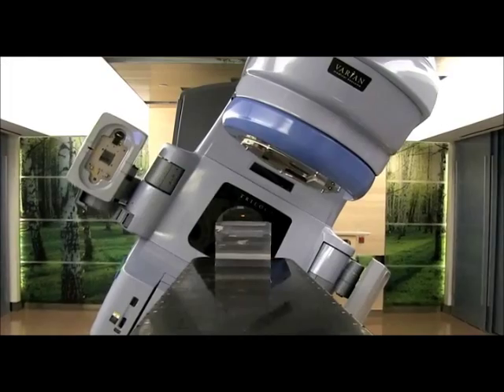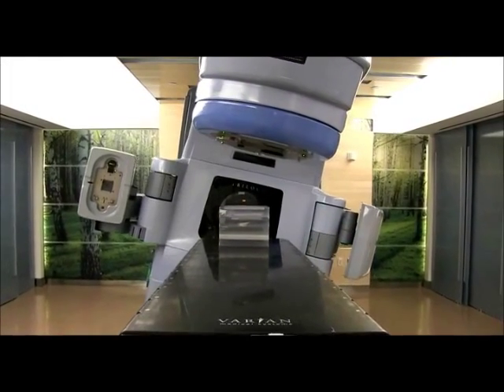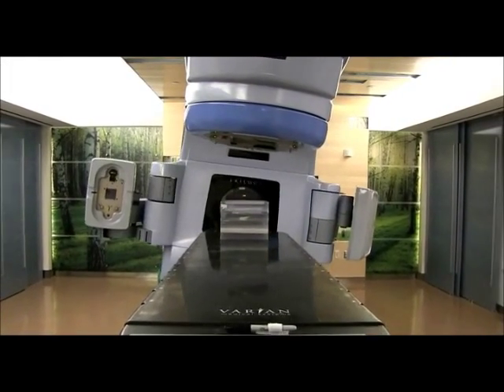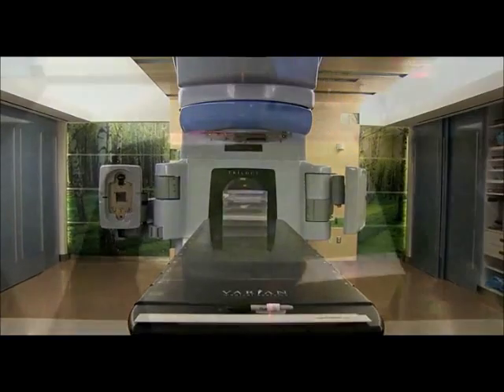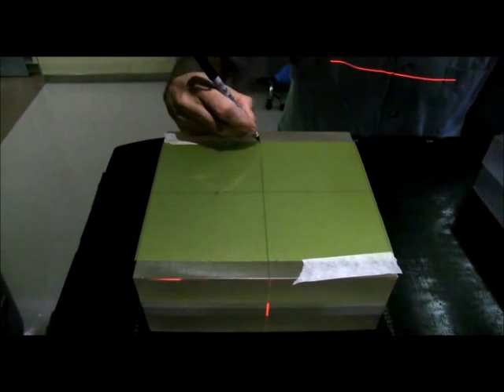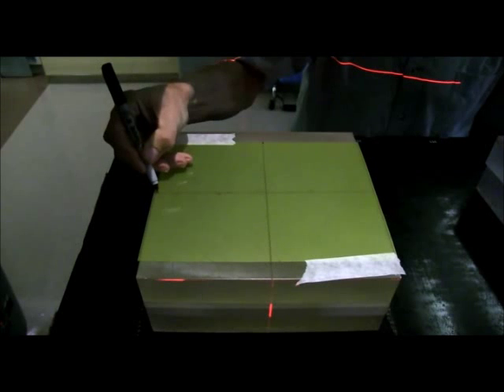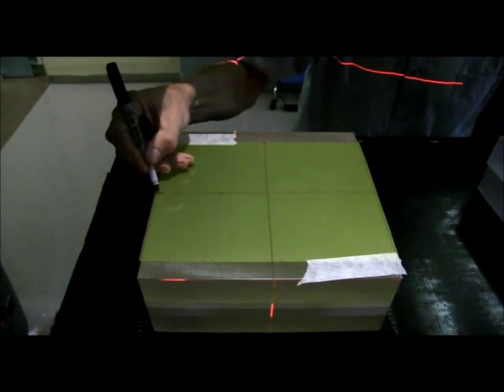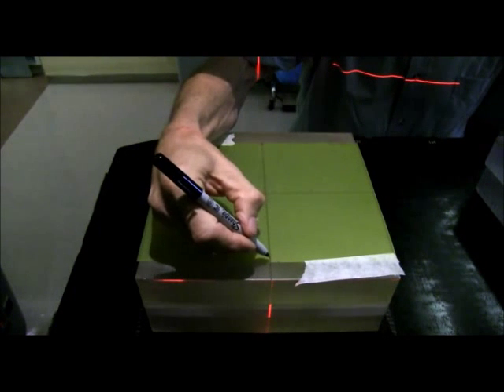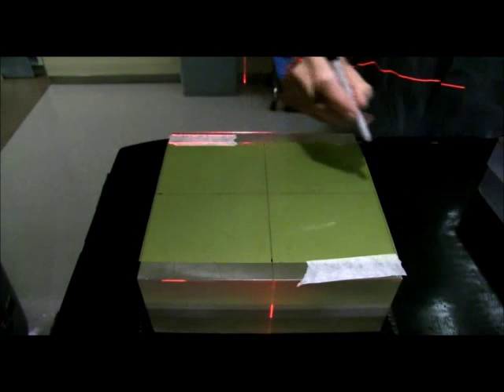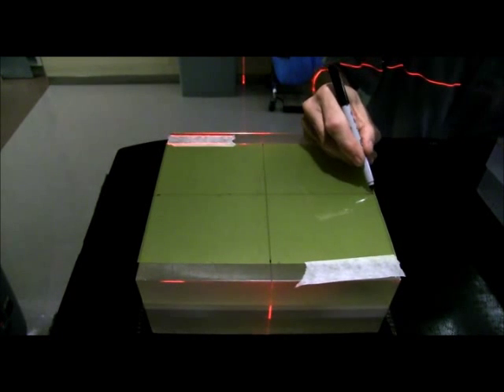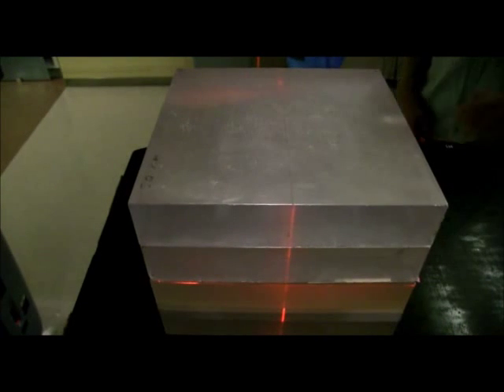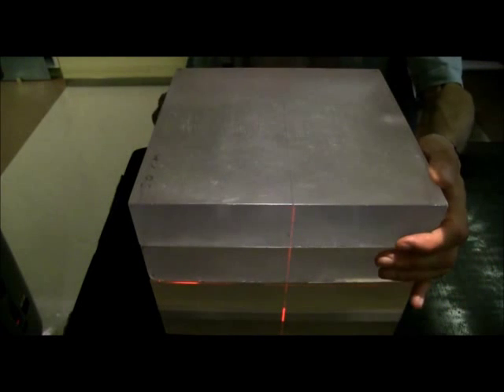Now, onto OneScan Measurement, where you combine plan verification with recalibration in a single scan. Starting with the exposure of the application film, as usual, you use the light field to indicate where to mark the film and show the axes of the treatment system. Later, you'll use these fiducials to automatically align the dose map with the treatment plan.